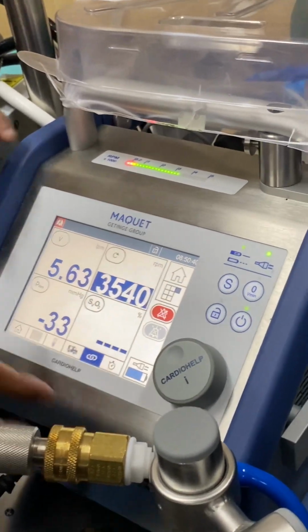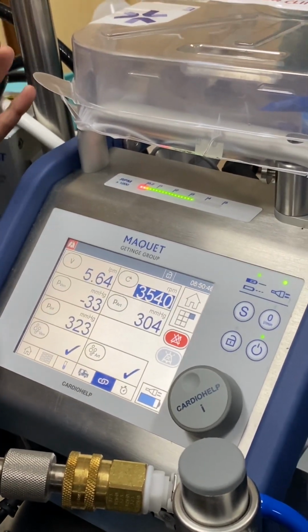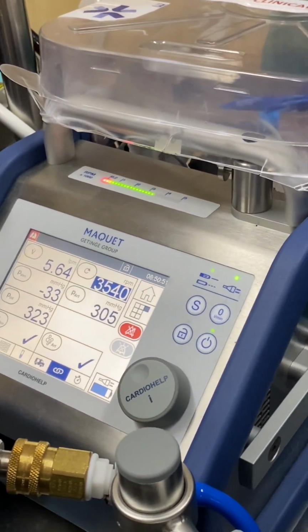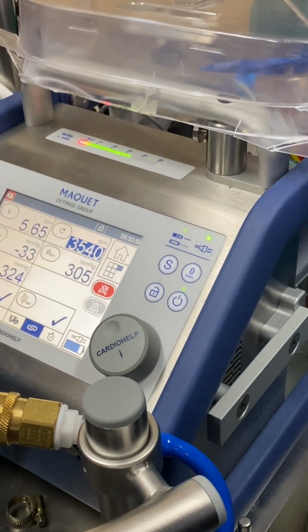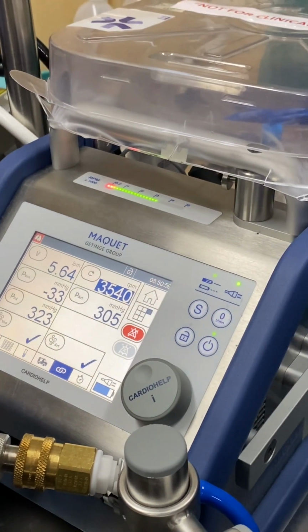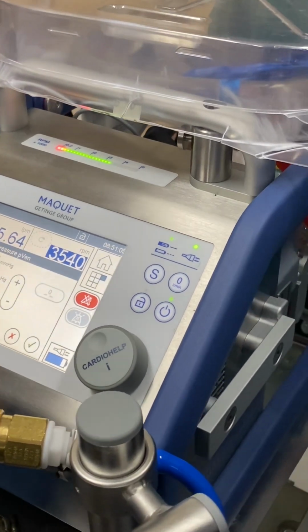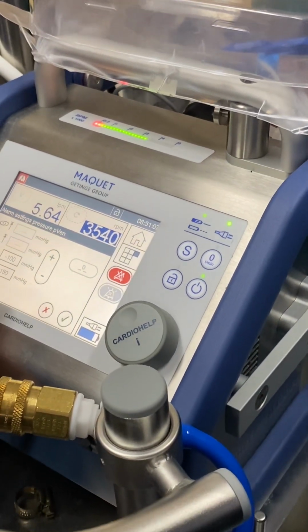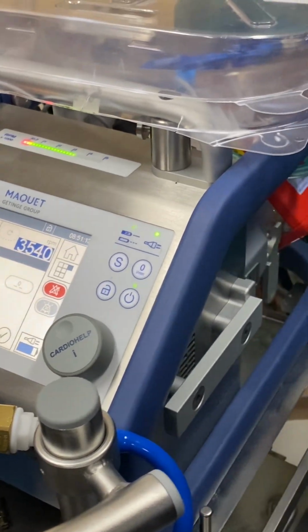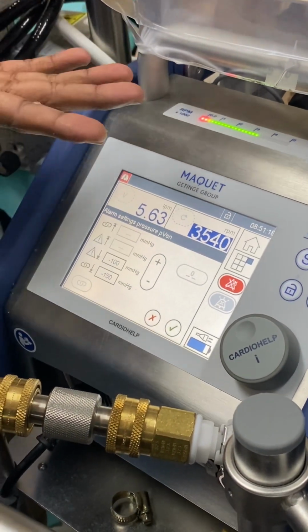Next comes intervention. This is a little important. Now, this machine is actually a little more intelligent. For example, it is getting all these values. So if we preset, give instruction to it, it can do things to prevent accidents. For example, venous. If you go into the venous, we have limits setting up here. This is a warning sign and this is an intervention sign. Now intervention means once this limit is reached, we are giving permission to the machine to intervene in the therapy.